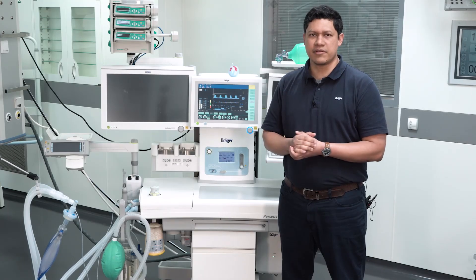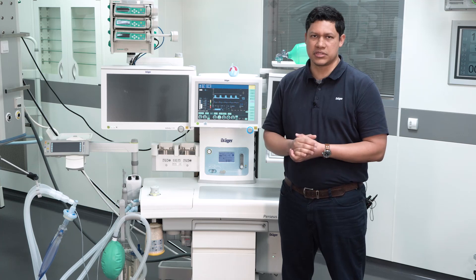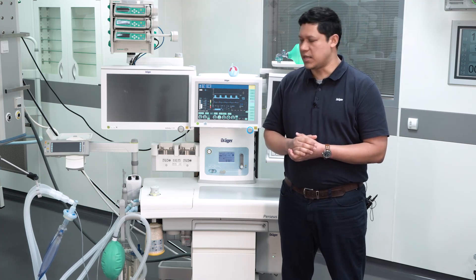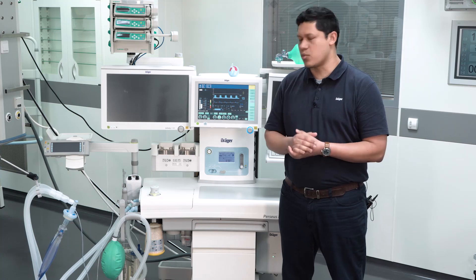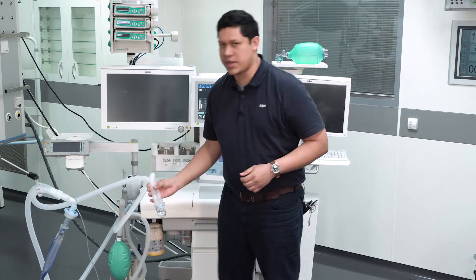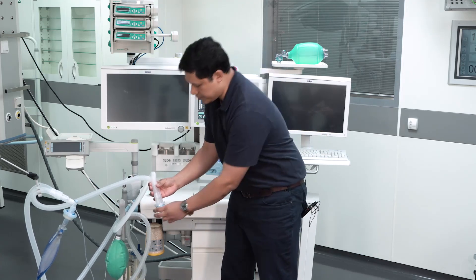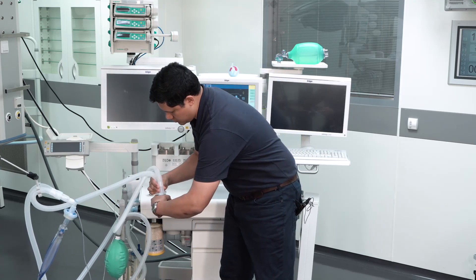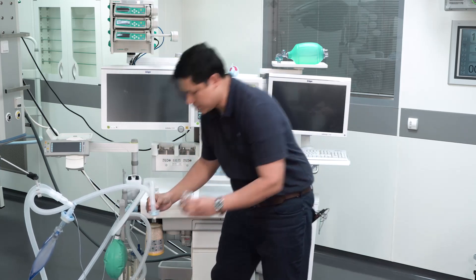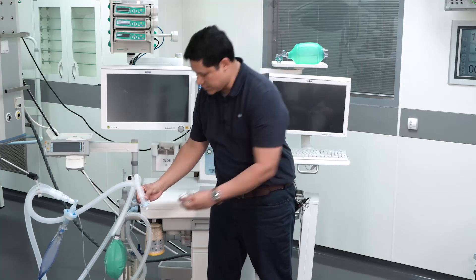Additionally, you have to verify the condensed level of water in the breathing hose system. The recommendation is to use a breathing hose system that has a water trap. To drain it, just turn the water trap and directly drain it. Then put it back in its place.